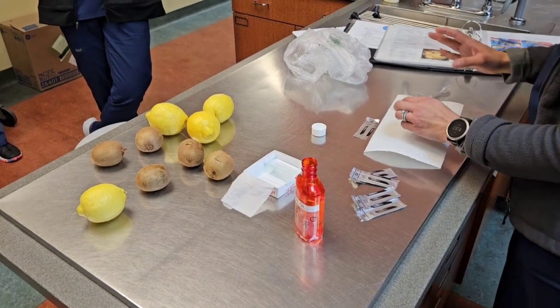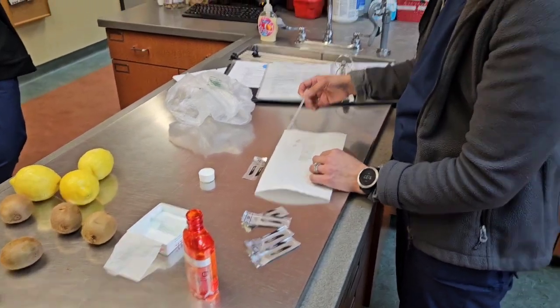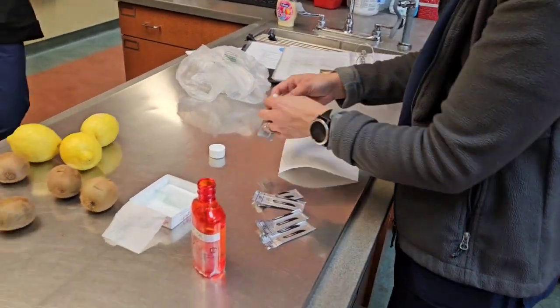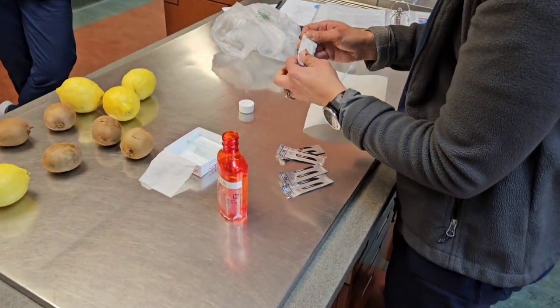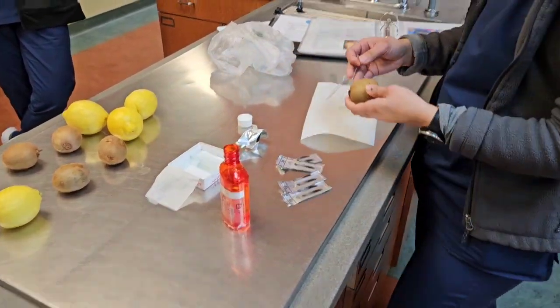So first you want to get a slide and put a drop of mineral oil on it so it's ready to go. And then the kiwi seems like a better choice because it's hairy and a little bit more like skin.